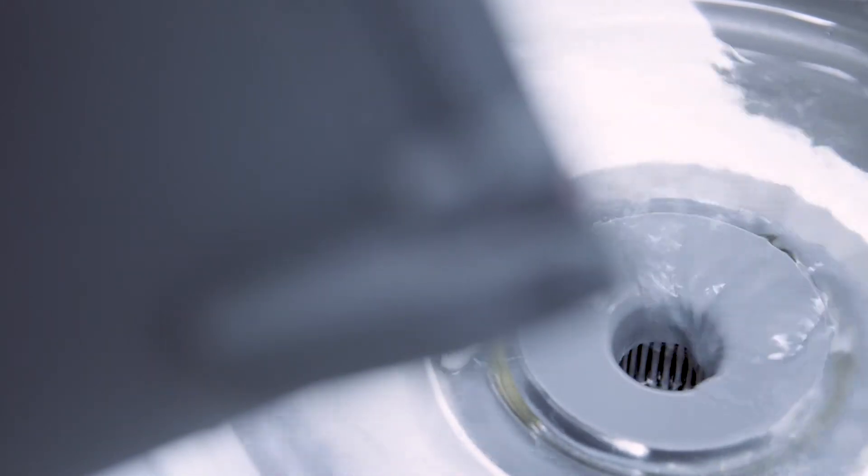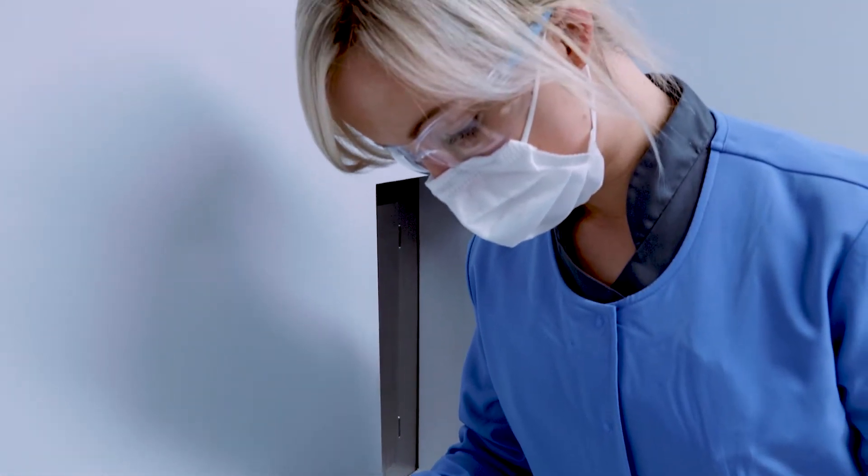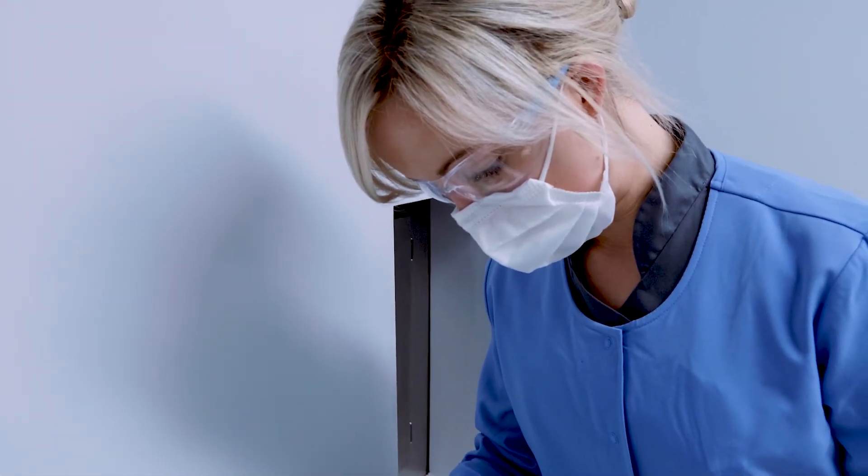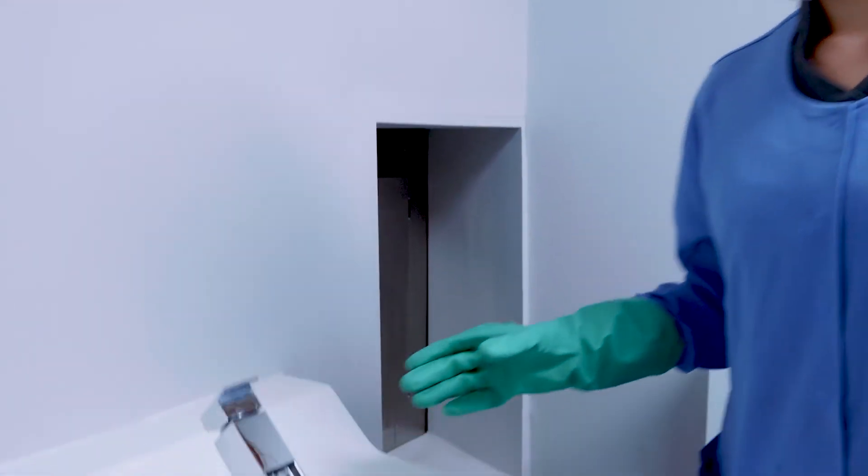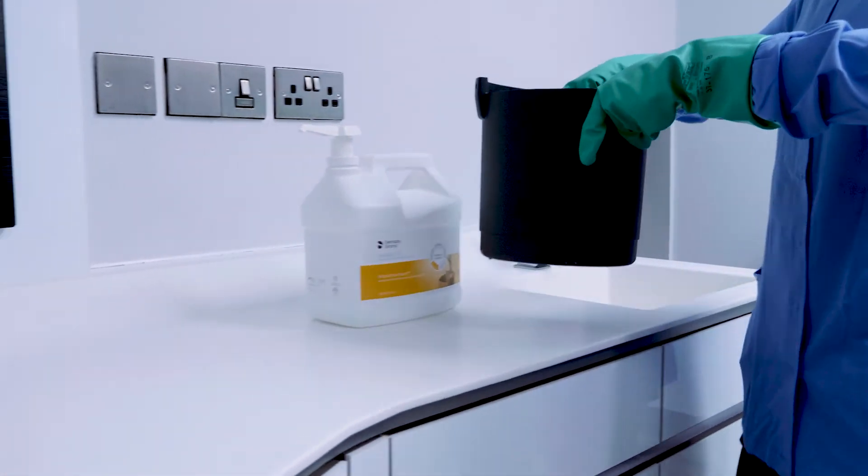Any remaining PureVac SC cleaner can be poured down a cuspidor or drain. Refill the dispenser per the initial instructions if you need to treat additional operatories. Once all operatories have been treated, turn off the suction in the first operatory.